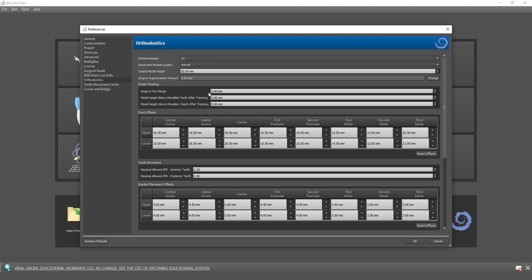This is just for cleaning up the model, and the software places that curve two millimeters under the gingiva margin. The setting underneath that defines how much space should be left for the model height underneath the trim curve. When creating the curve for automatic milling, we're going to be adding a locator to properly position the model in the milling machine. Most locators have a height to them, so you need to make sure the height under the trim curve is high enough. If your locator is four millimeters high, we're going to leave a height under the model cleanup trim curve of five millimeters for both the upper and lower arch — that's an important setting to keep in mind.